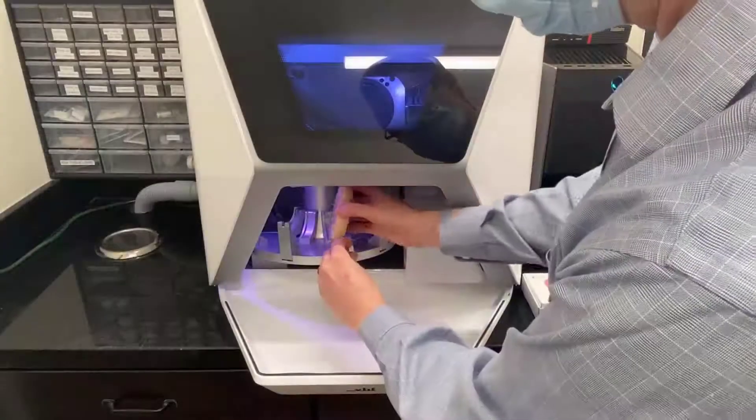But yesterday, I wanted to give it the test with my new R5 unit. I loaded up an arch of teeth, an arch of base for both the upper and lower, and in addition to that, a zirconia crown. I put in a couple of zirconia crowns into my mill, so I literally, at 5 o'clock yesterday, clicked play on my R5, and let's see what happened.